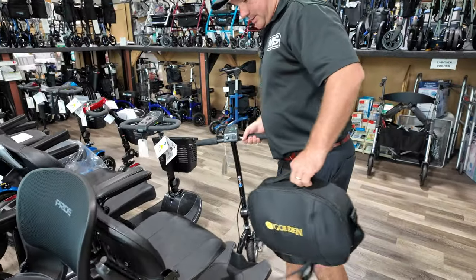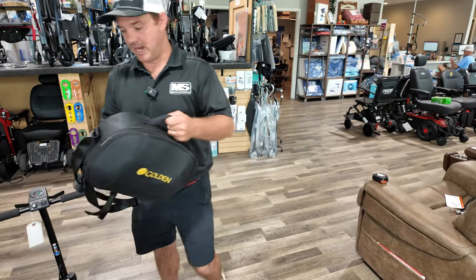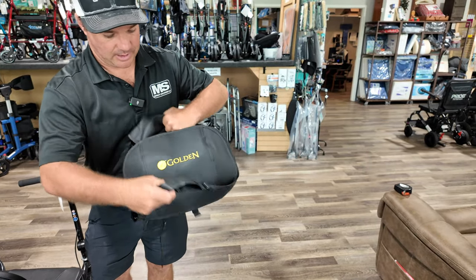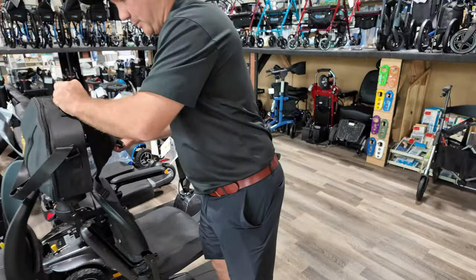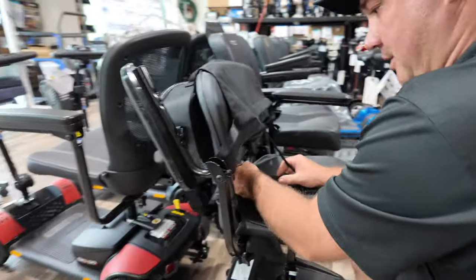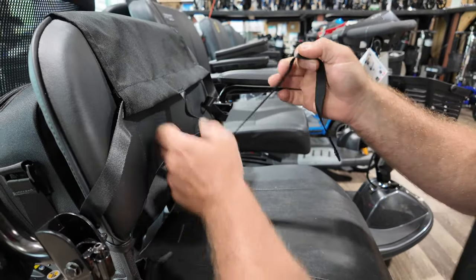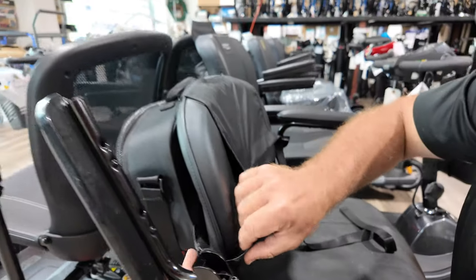Here is a Pride ES, and this could be a great solution because this ES2 doesn't come with a basket. This is your little clip. Let's bring this around. How you would attach it is this would come down like so, and then you just buckle it right here and then you can tighten it up. Now this is going to be a lot of strap, so you can cut it and figure it out. Once you get this attached, you won't have to do all this.